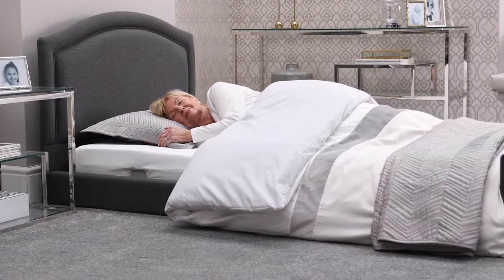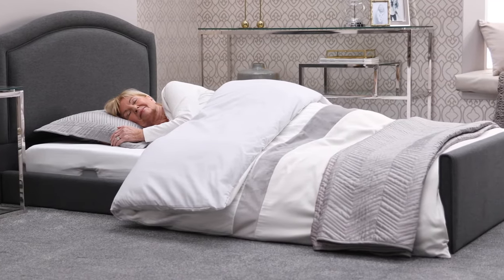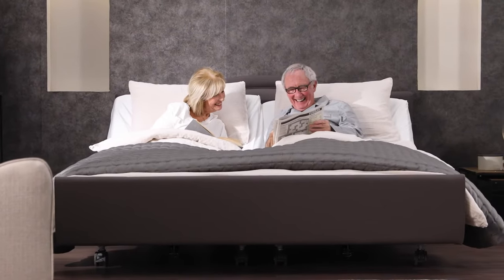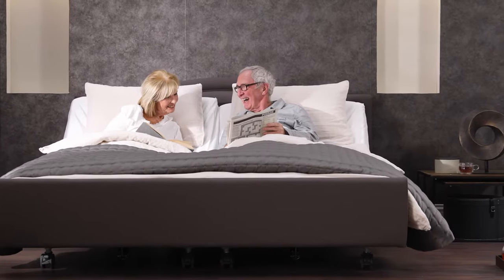Lowering close to the floor also assists with swinging legs onto the bed, and our floor beds provide an ultra-safe sleeping height. You can also choose the ideal size of bed for you and your room, and there is also a dual bed available for couples.